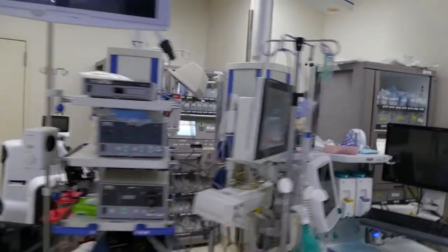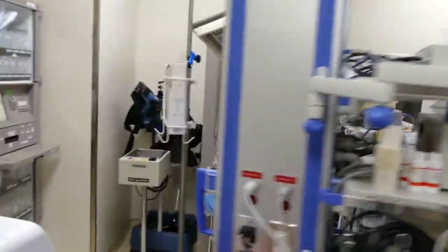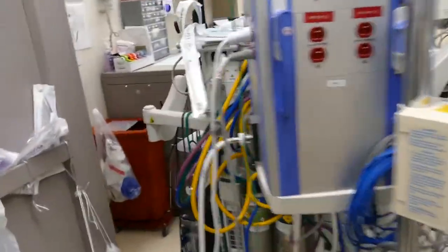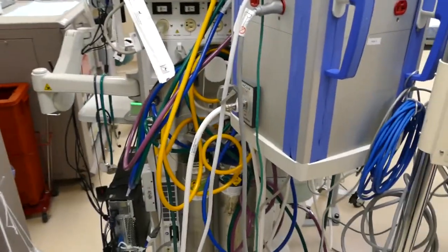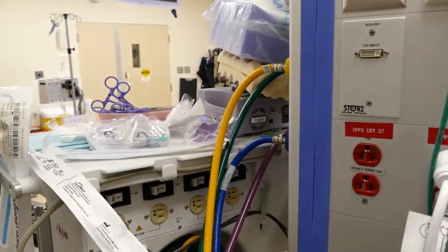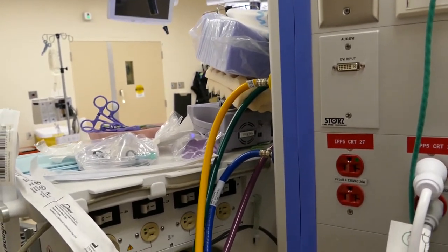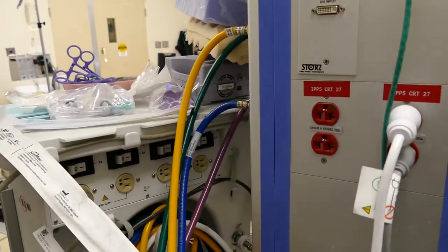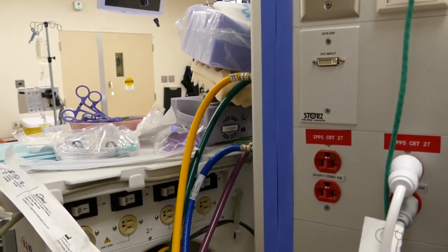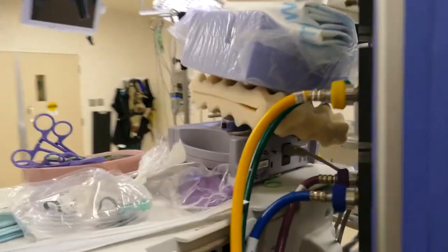Let me circle around so you guys can get a better view of it. It's got electrical circuits, but most importantly it's got gases. You can see right there there's vacuum. Right there you can see the nitrous oxide, which is the blue. We've got the waste gas, which is the purple. Medical air, which is yellow. And oxygen, which is the green. They connect right over here on the side of the boom.